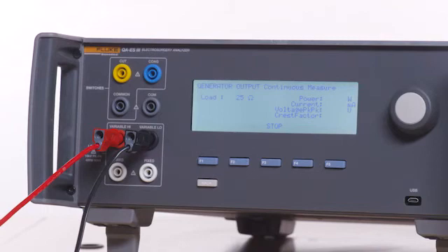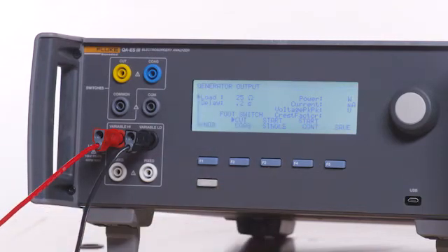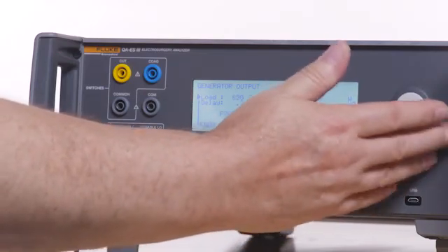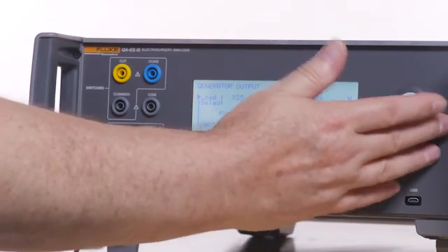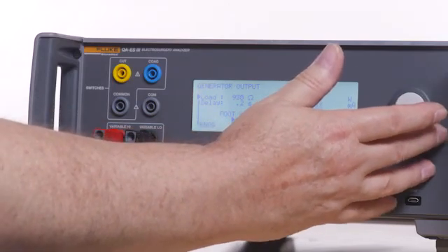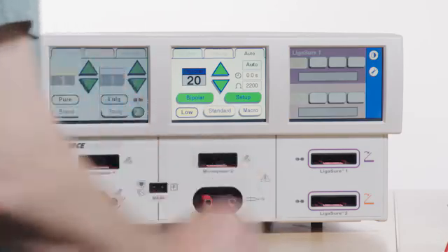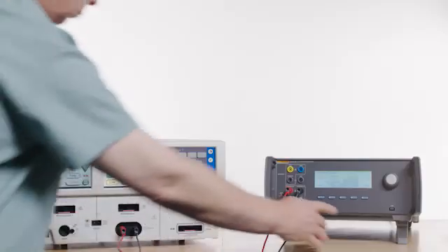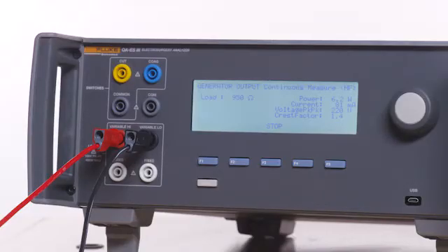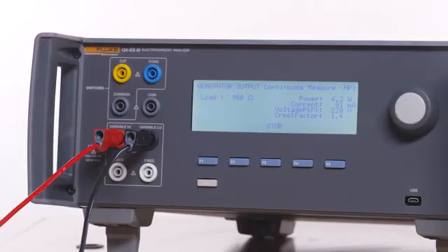Verify RF generation stops. Press F3 on the QAES3 to stop the test, then select 950 ohms. Reconnect the test lead to the Force Triad. Press F4 on the QAES3 for start continuous. Verify RF generation occurs automatically at 20 watts.